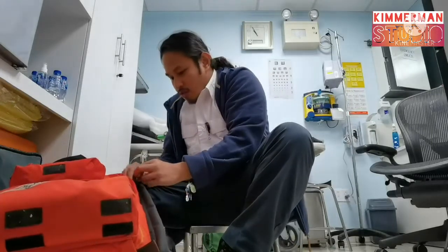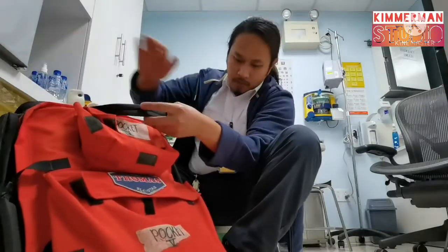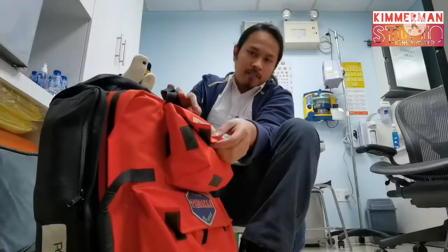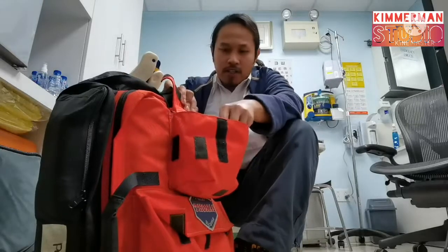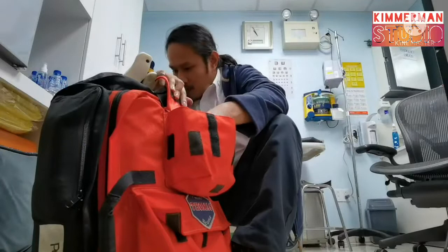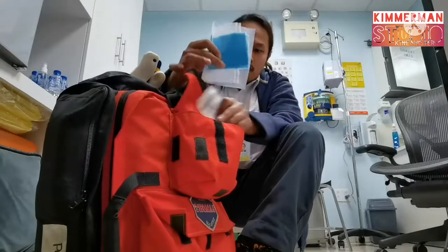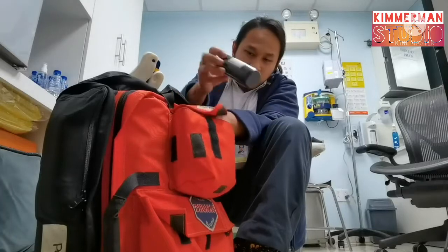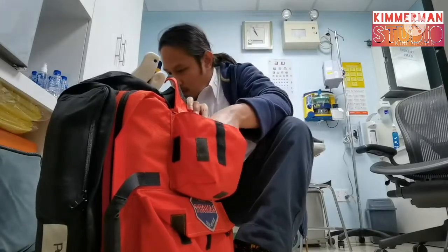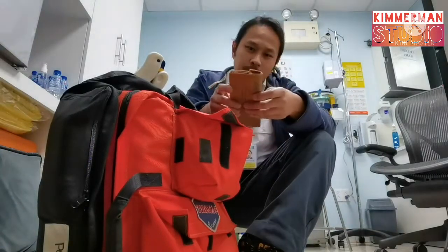You need to check this systematically to avoid confusion — check it chronologically: pocket one, pocket two, pocket three. Now we are going to pocket four, where you can see the yellow hazardous materials bag, the general waste bags, a sharps container — anything that is puncture-proof plastic — and a box paper bag where your patient can vomit.